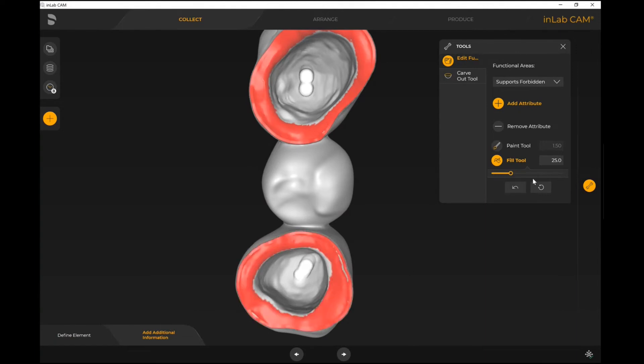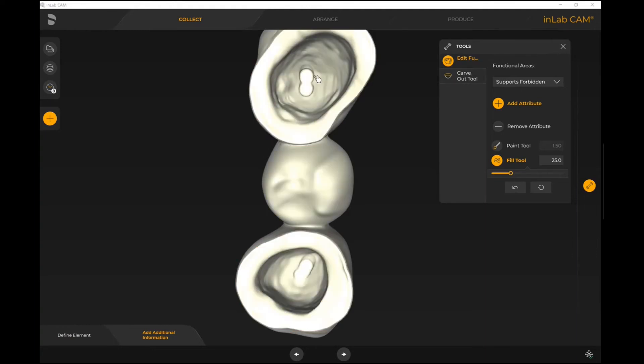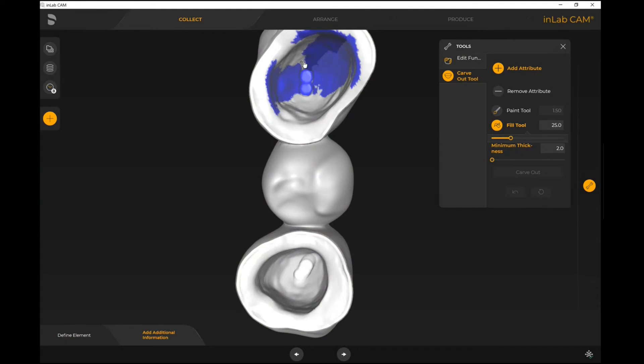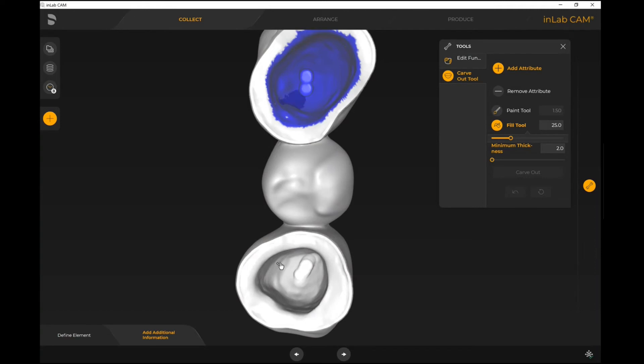Obviously we do not want the item to fill that in. The carve-out tool, so areas where it's going to be hollowed out, I can identify them as such here. I'm just basically holding my cursor in the intaglio surface.